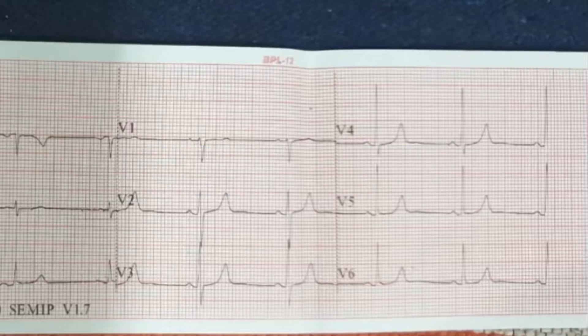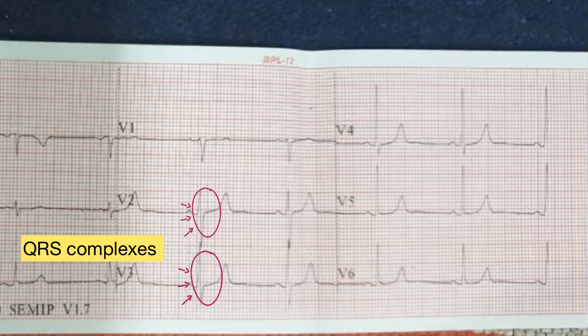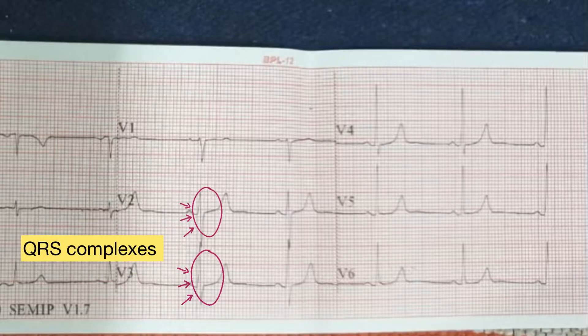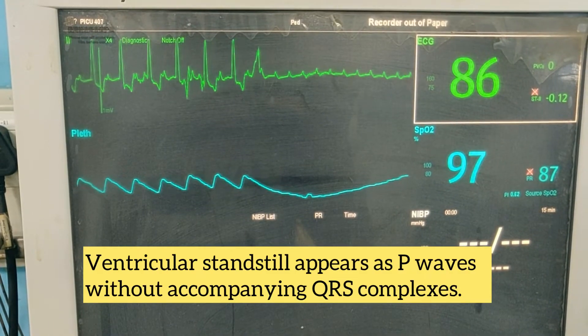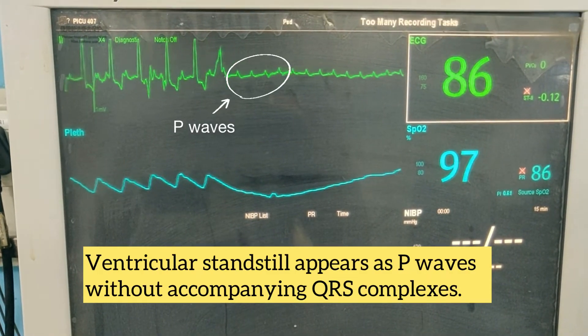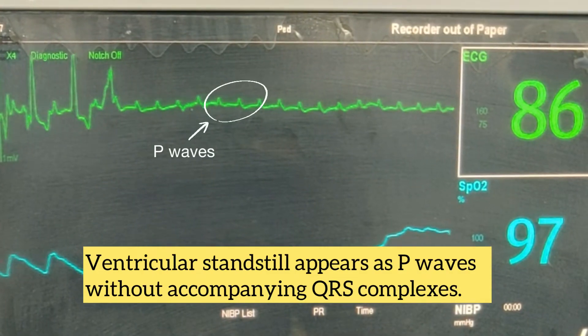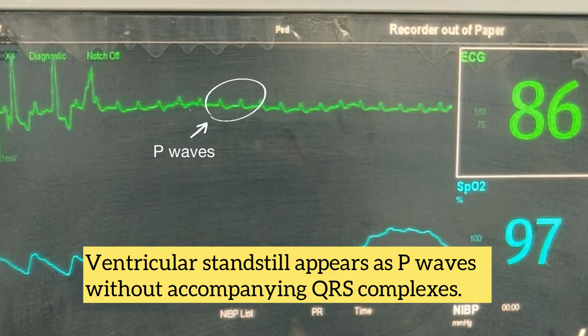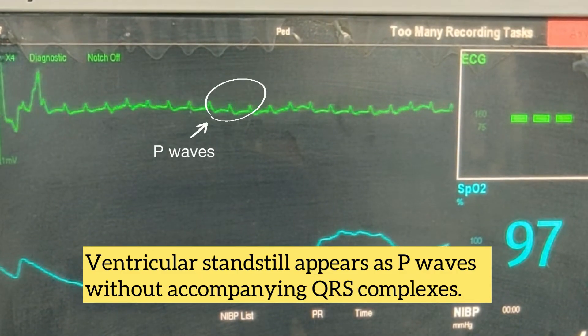So, how do we recognize this on an ECG? As we know, a normal ECG comprises of a P wave followed by a narrow QRS complex. Ventricular standstill appears as P waves without accompanying QRS complexes, so the P waves are not followed by QRS complexes in this ECG.